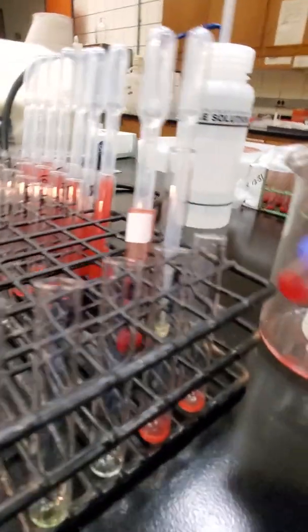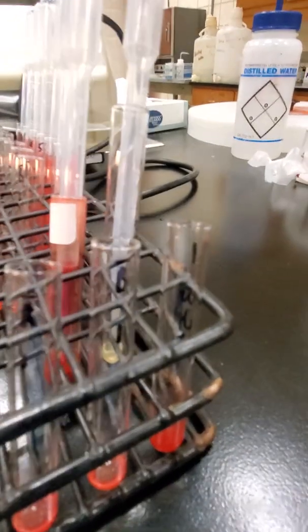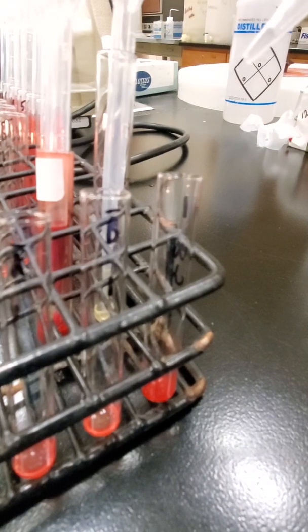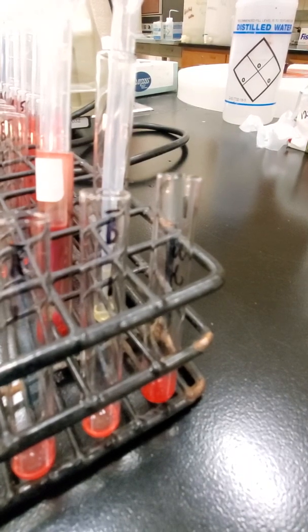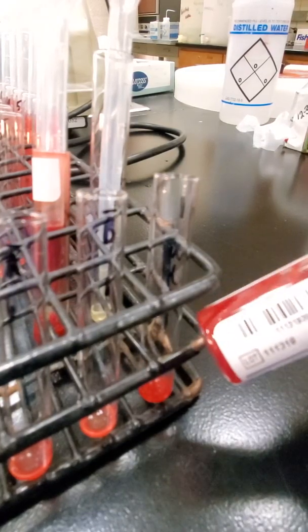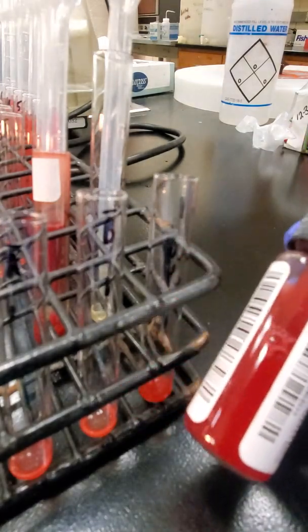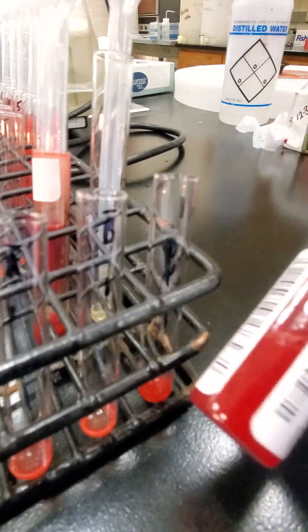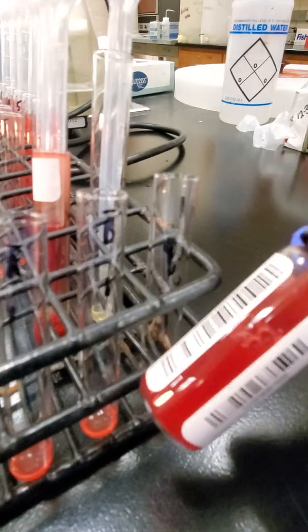So we still have our red cells. That's what we want. So I'm going to reconstitute this to about a 3 to 5% cell suspension. And when we're doing this, I'm going to add saline a little bit at a time. Just until you get used to making a 3 to 5% suspension, what you can refer to is your reagent red cells. Whichever one you want to use, these are already a 3 to 5% suspension. And I didn't mention this earlier, but because these settle out, we want to make sure that these are mixed really well before we add them to our testing.